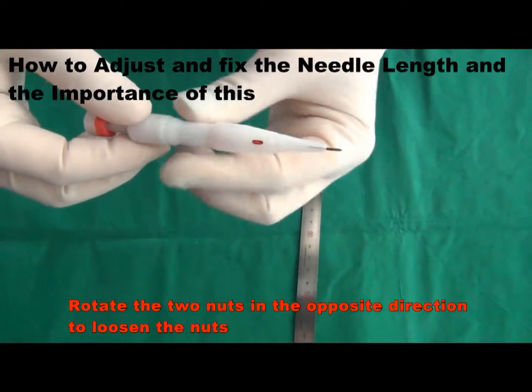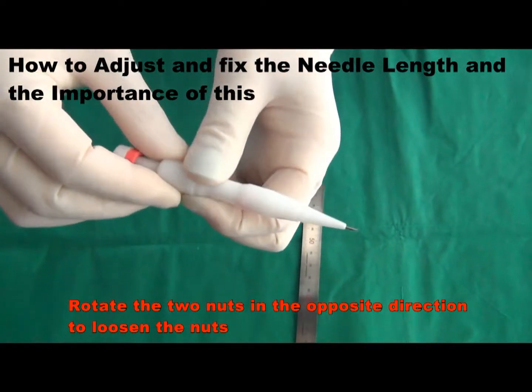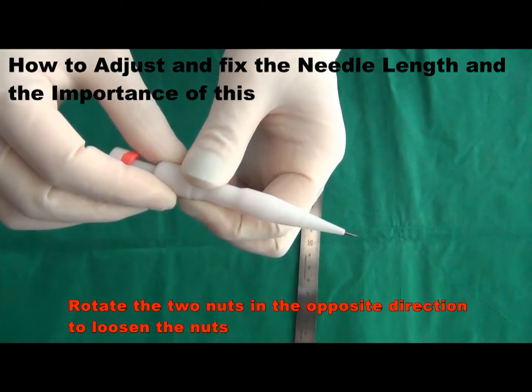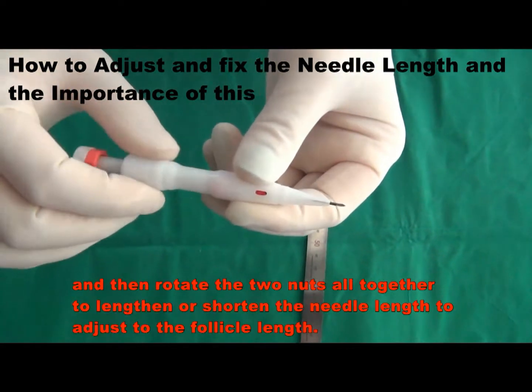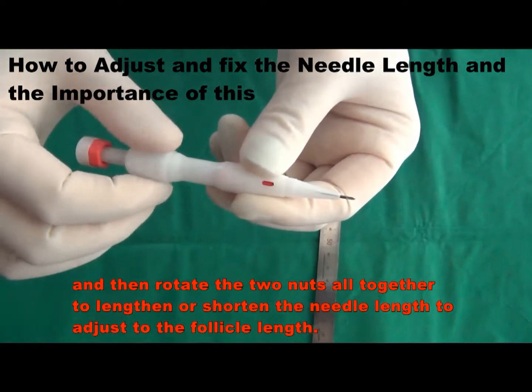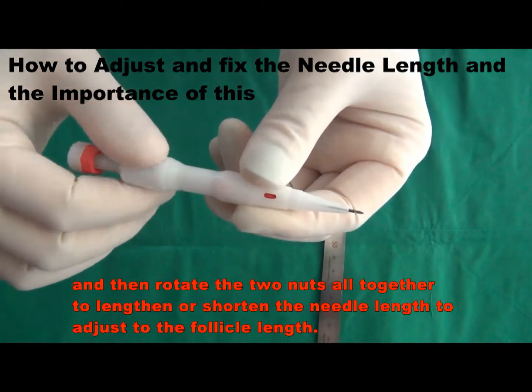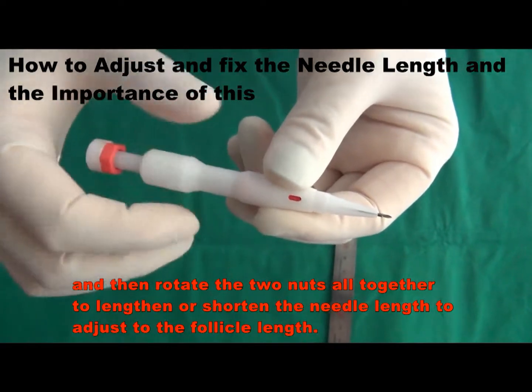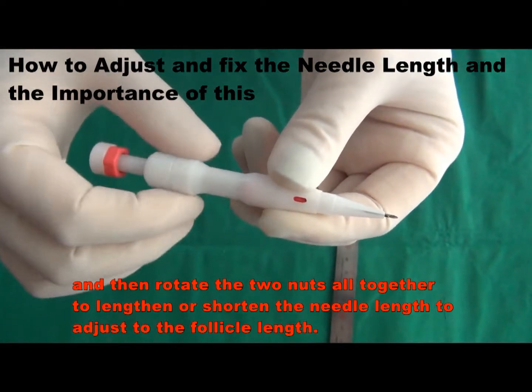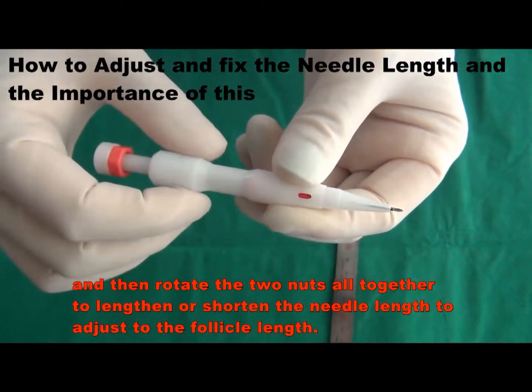Rotate the two nuts in the opposite direction to loosen the nuts, and then rotate the two nuts all together to lengthen or shorten the needle length to adjust the follicle length.